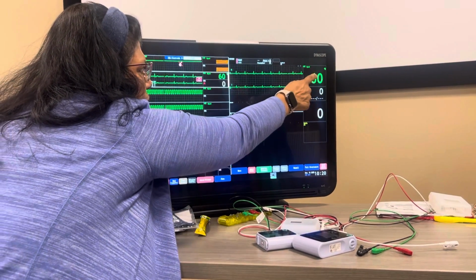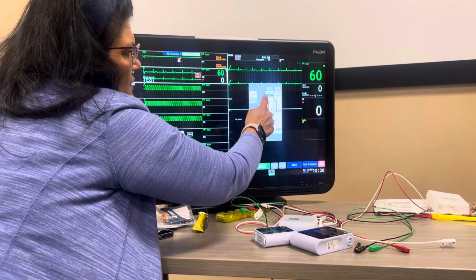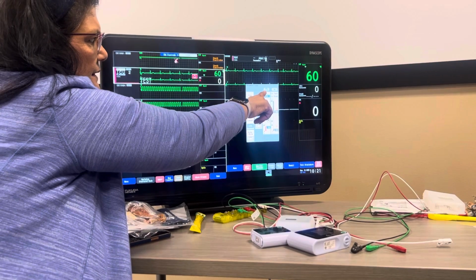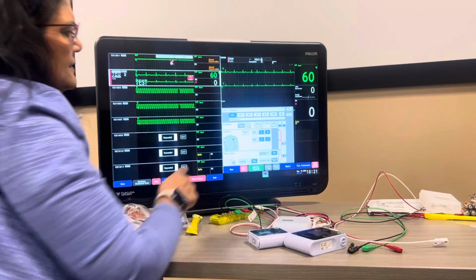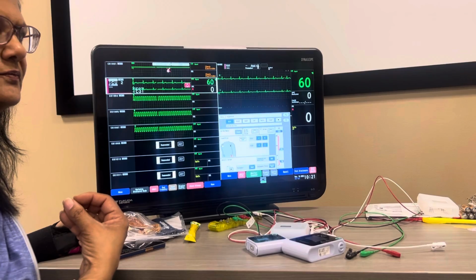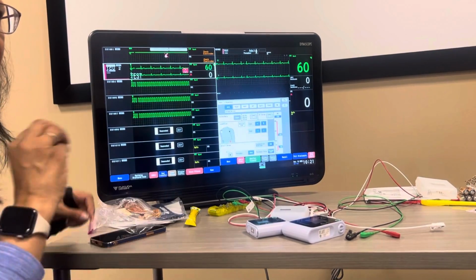The other way you can do it is you can click on just specifically the heart rate, and you can touch this and you can go up and down too. Now you see that page within a page, so we're still under heart rate. I go to the second page and I can see the leads. If it's flashing red at you, that's the lead that came off. Okay. Well, that's helpful. Yeah, that's actually really nice. That way you don't have to go digging into the patient.